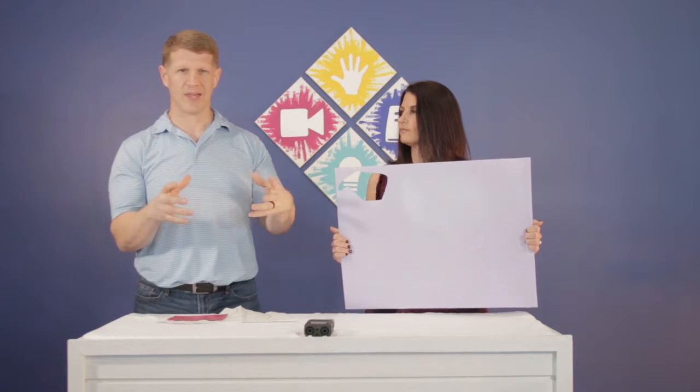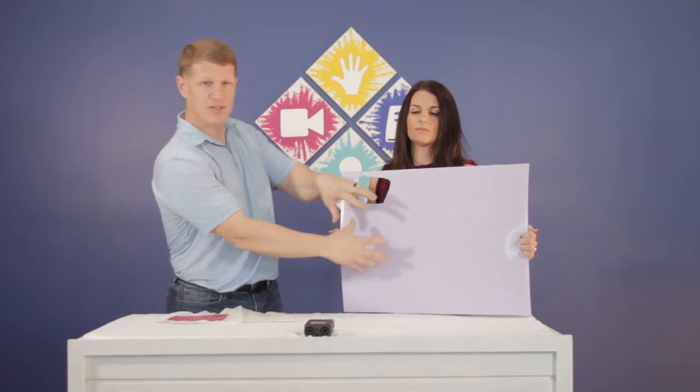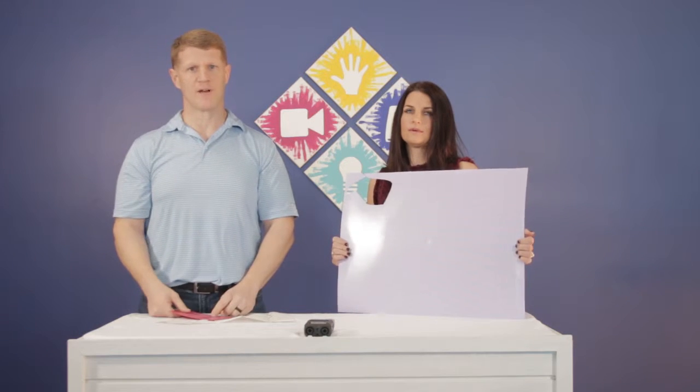This method won't leave all those weird hang-offs and weird shapes that you're left fitting the next splint on. It's going to give you a more efficient way to work, and it's going to give you more time to spend with patients — explaining things, wear and care, all that home education stuff.